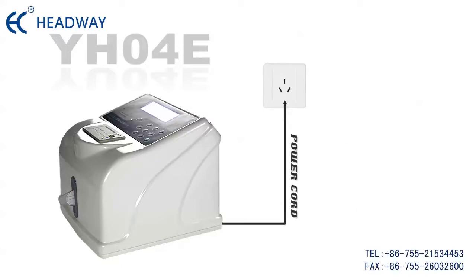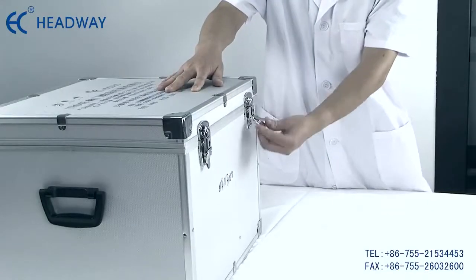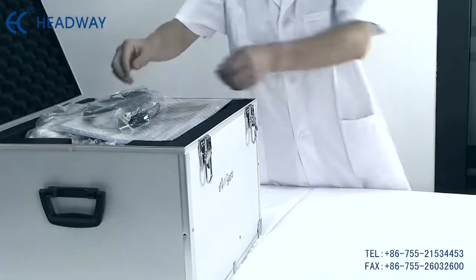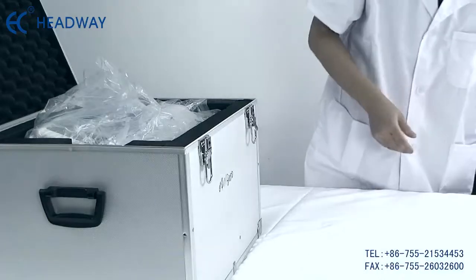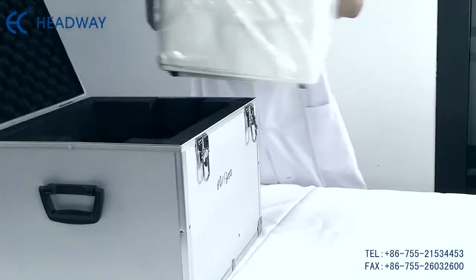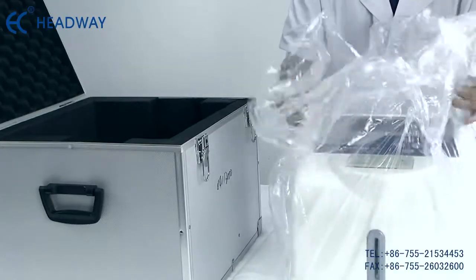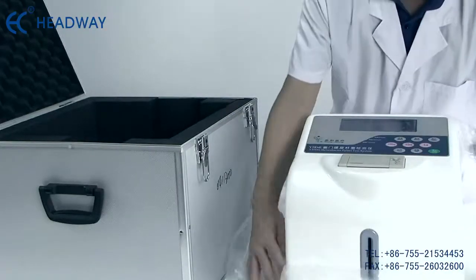The device should be connected to a safety ground and installed far away from high-power devices. Check and make sure the packing box is not damaged or upside down when you receive the device. Open the packing box, take out the EPE packing material and accessories, and check all documentation and accessories are complete and in good condition.